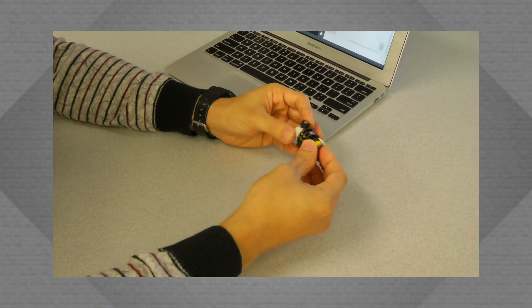that we can see as Lego bricks that researchers can use to assemble medical capsule robots. Thanks to the modular architecture we are developing, researchers can focus on the final application instead of having to develop from scratch the single hardware and software pieces.